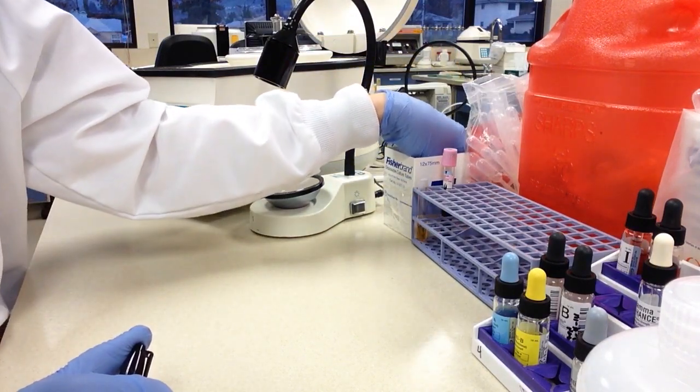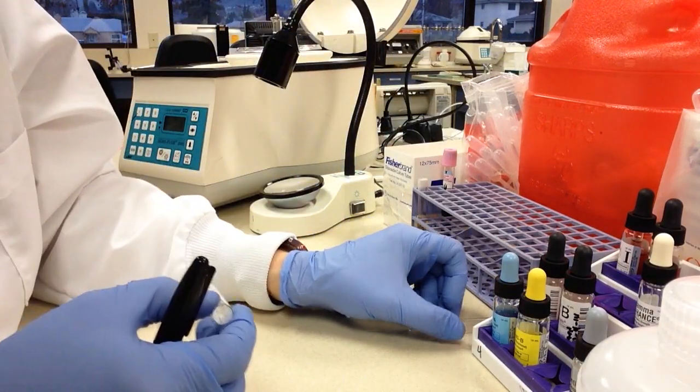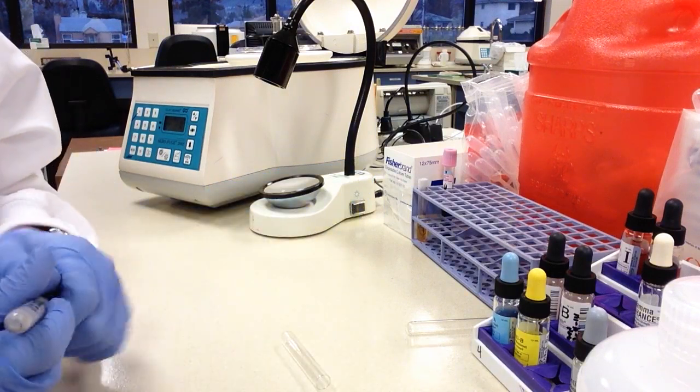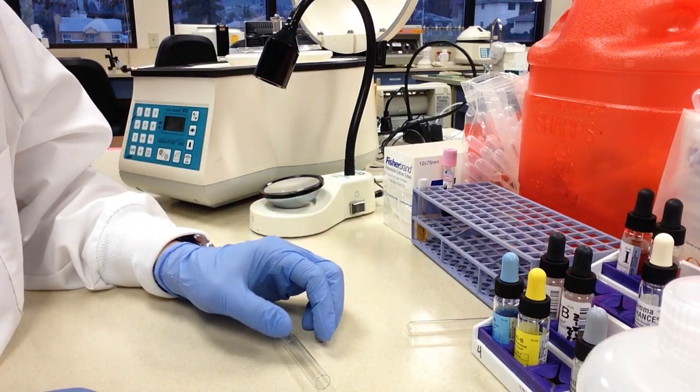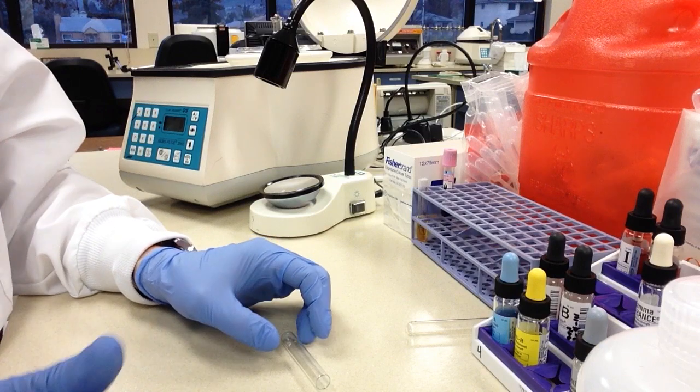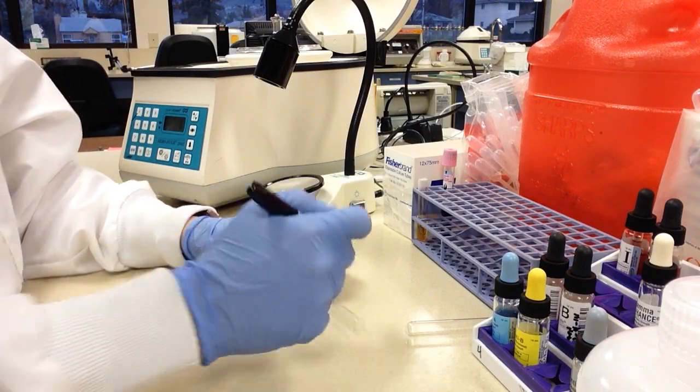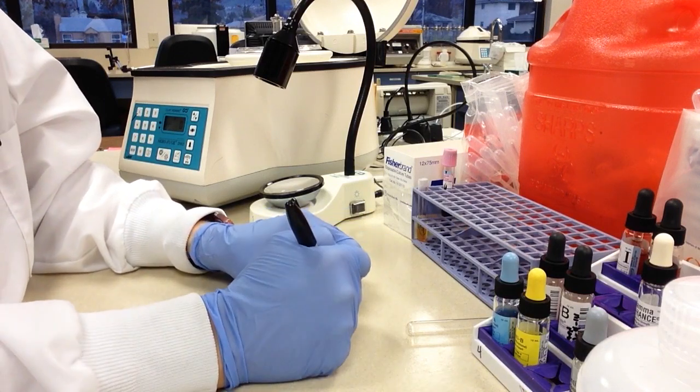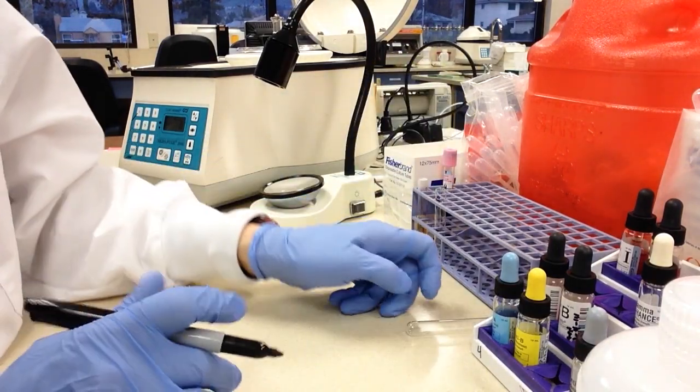So what I'm going to do is I'm going to need to make a new glass test tube in which we're going to wash and make our suspension and as with all tubes in blood bank testing it has to have an identification on what it is. So this patient's name is 14 so I'm just going to write 14 and then 3% so I know what that is.